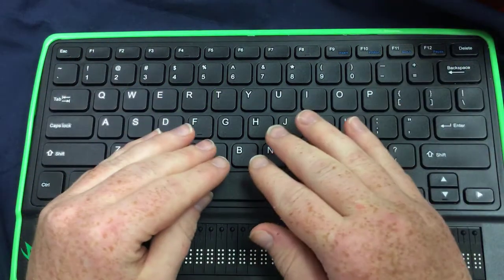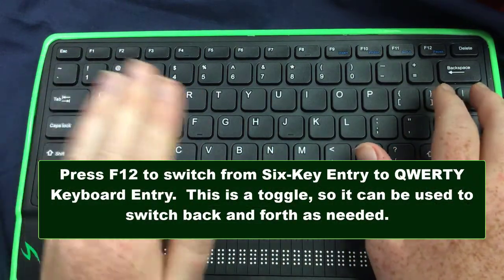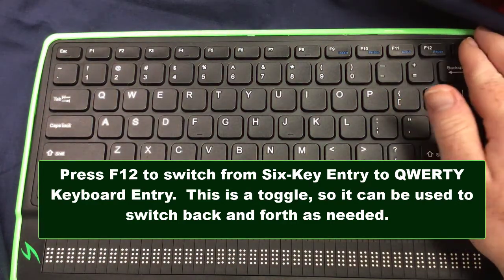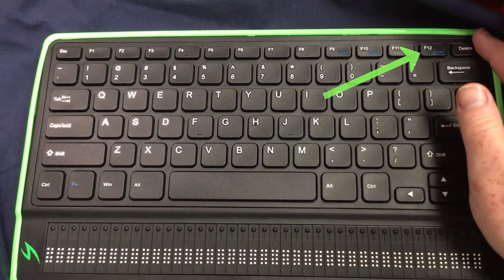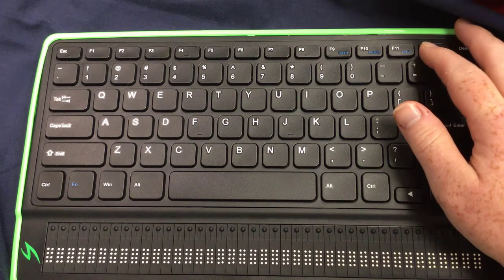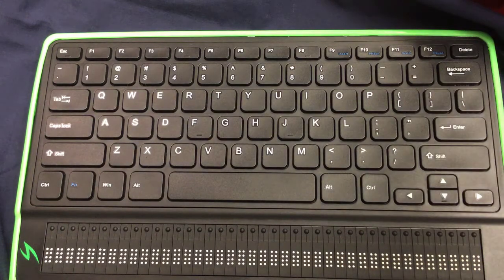You don't have to use this method, obviously. If you want to switch between the six-key entry method and using this as a standard QWERTY keyboard, you're going to want to press F12. To find F12 quickly, go to the upper right corner of the keyboard and find the delete key. Move one key to your left — it's marked with a very small bump along the bottom — that is the F12 key, which will toggle between QWERTY and six-key functioning.